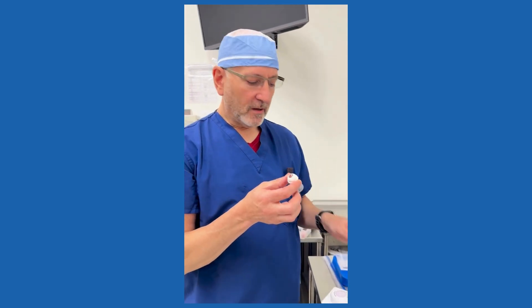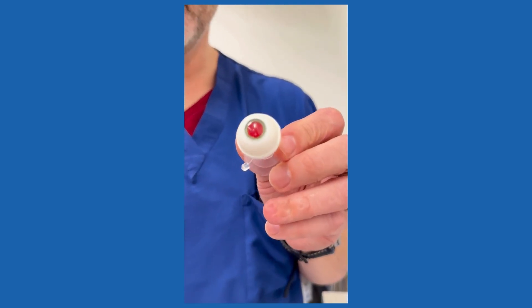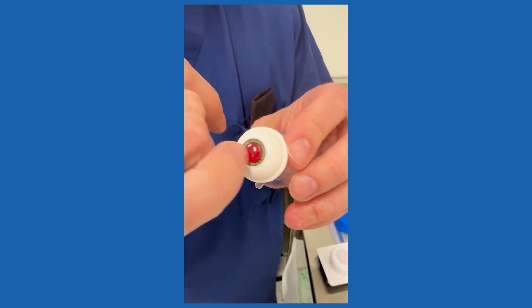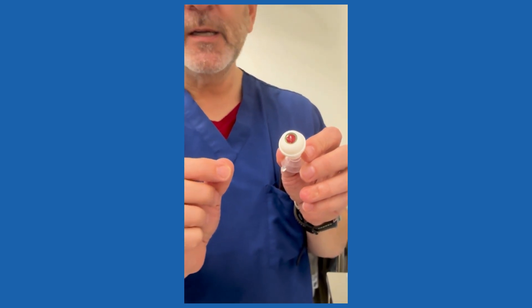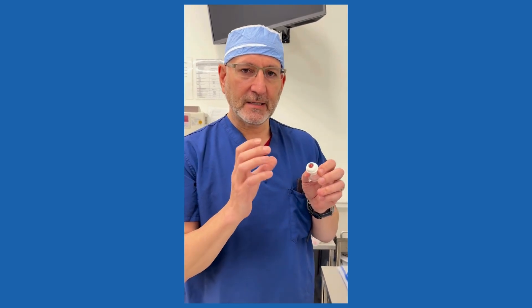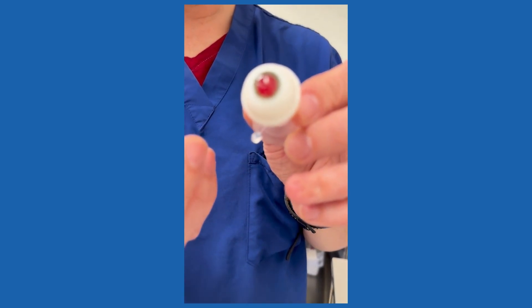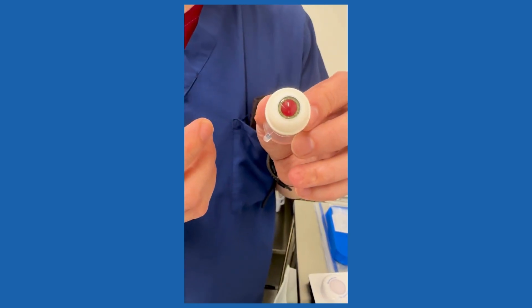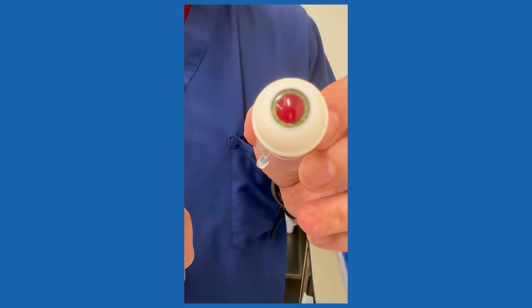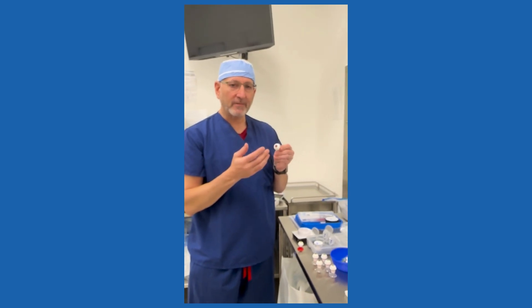This has subsequently evolved because we wanted something really for slit lamp training and to see the full anterior chamber. That model has now evolved into this — called SLE BIO: slit lamp exam, binocular indirect ophthalmoscopy. This model has a hard cornea with true anterior and posterior curvature of the cornea, a true anterior chamber, angle structures which are marked so you can put a gonioscopy lens on there and view the angle, the iris, and a true lens inside. It has the same retina, and this eye is completely filled with gel which mimics water as far as refractive index. We're using this eye for teaching slit lamp exam, teaching binocular indirect ophthalmoscopy, and it's also a good diagnostic eye where you can measure the length of the eye like biometry, and you can get OCT measurements.